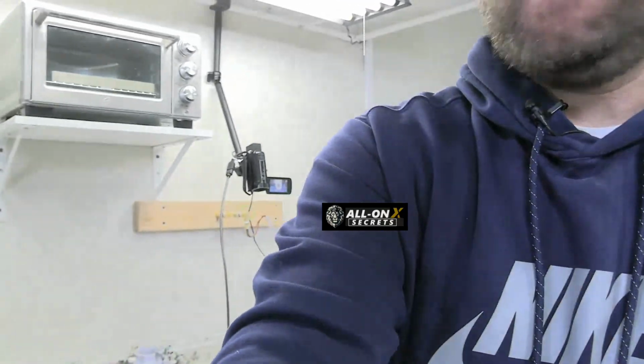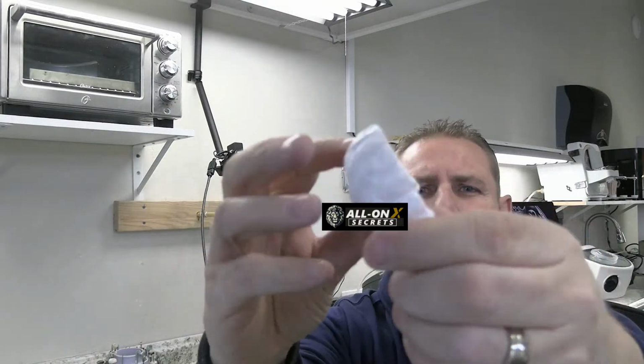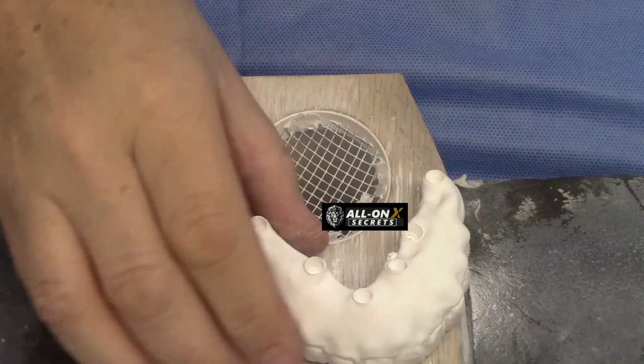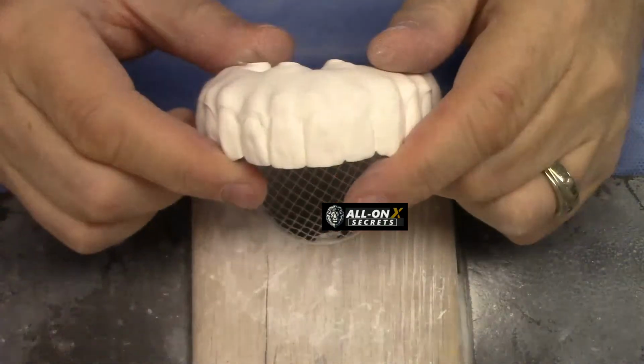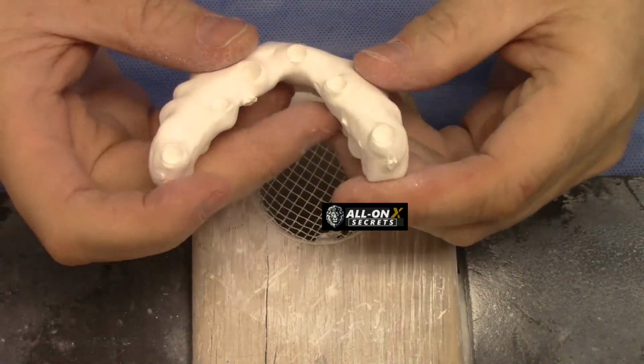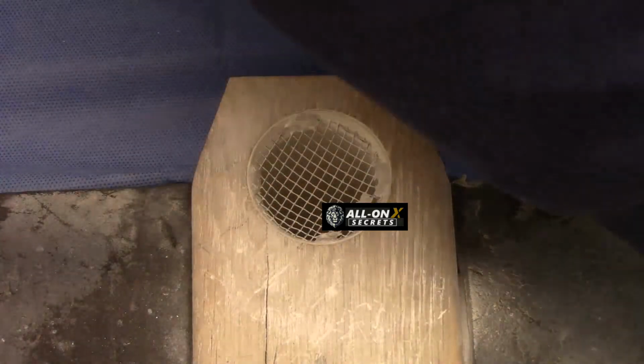Okay, so let's pull this in here. Okay, and we'll go to a different camera here. But let me kind of give you an idea of what it's looking like here. So this is right out of the mill. You probably see it better once you get over here. Okay, so this is what it looks like. These little, try to come as close as I can. We still just got to polish these off.